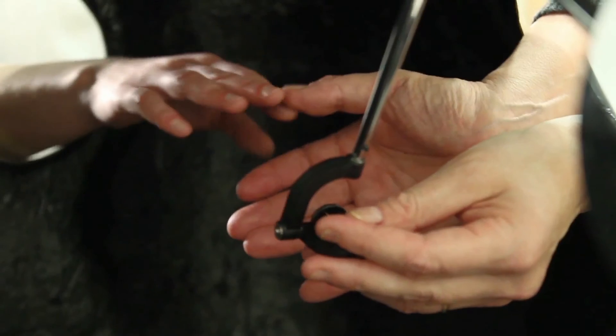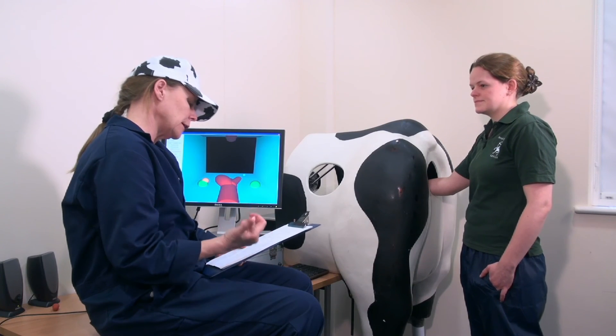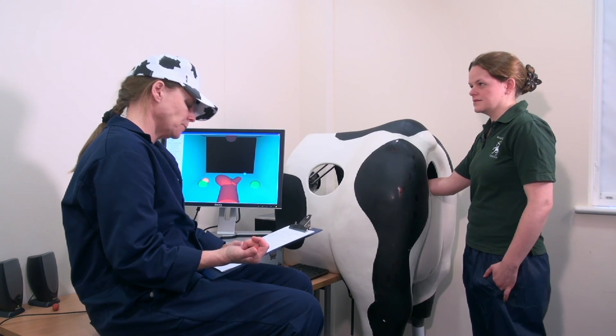The haptic cow and haptic horse are innovative and efficient veterinary training tools, with a strong consideration for animal welfare, and academic studies have proved their effectiveness with students.